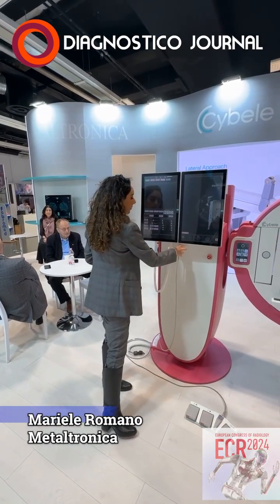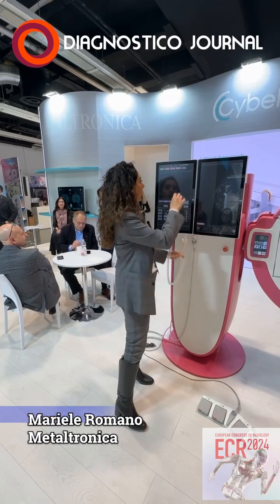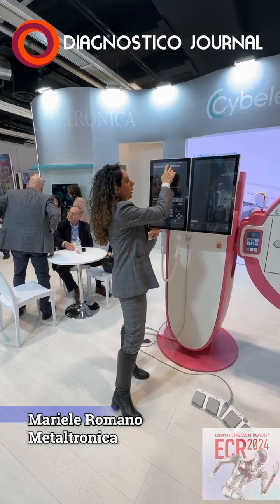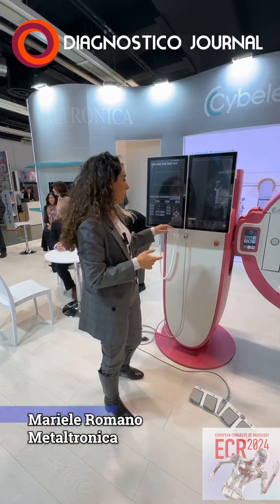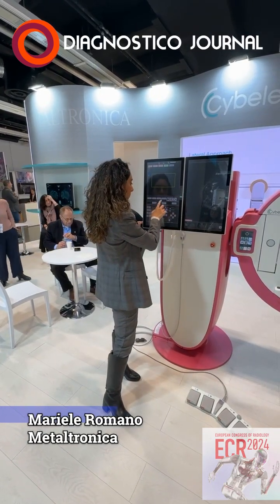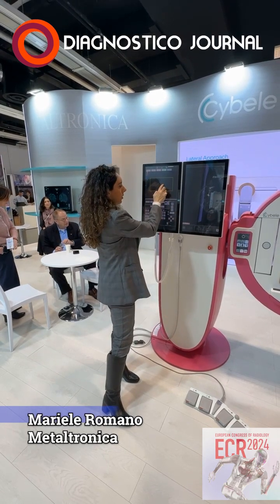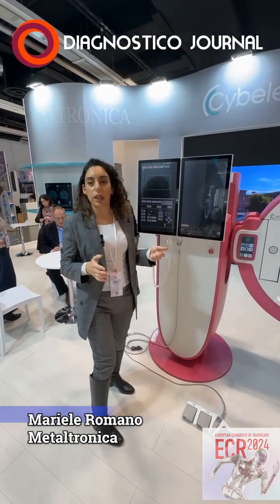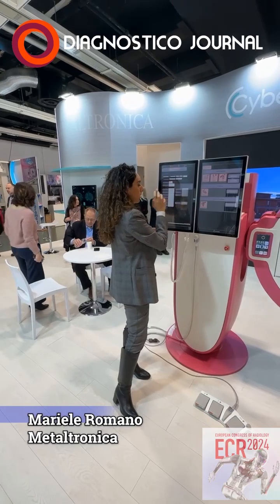And then we have here the probe that is 5 centimeters, and then we have these different modalities: this B mode, B wide, the power Doppler, or the color Doppler, the option to freeze or to run the acquisition, to make some measurement of distance or areas, and then everything is sent to the PACS as you close the study.